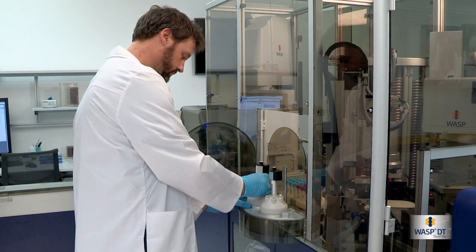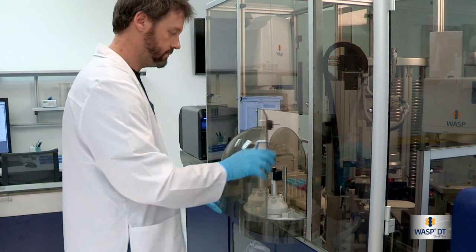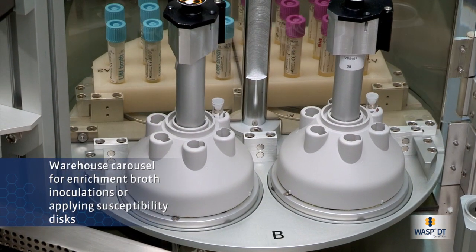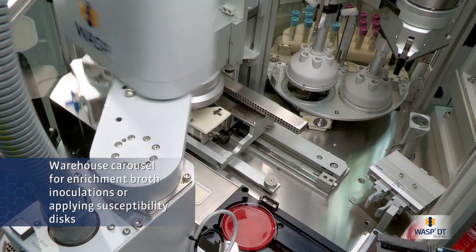Depending on sample protocol, WASP can inoculate enrichment broths or apply susceptibility discs at the Warehouse Carousel module.